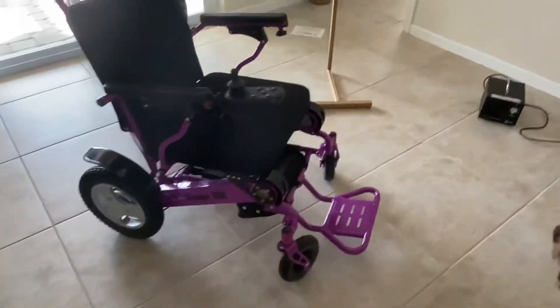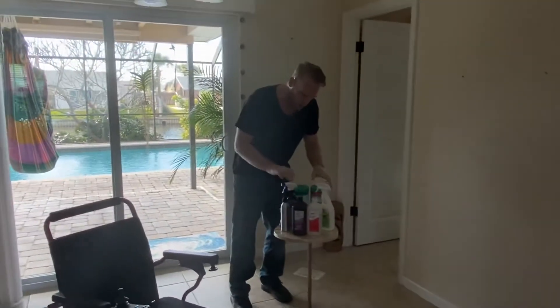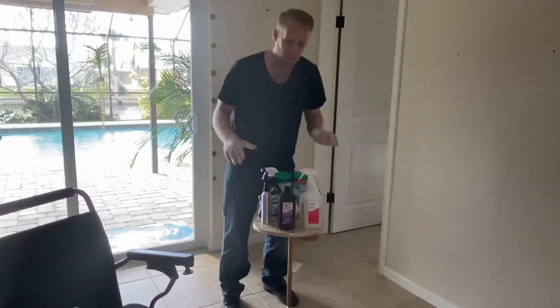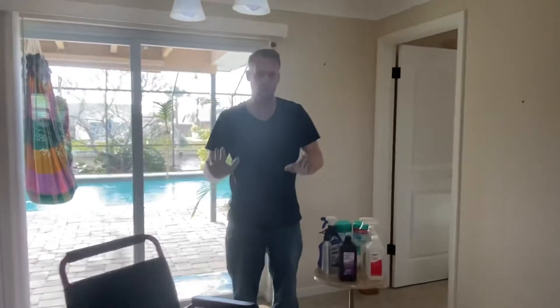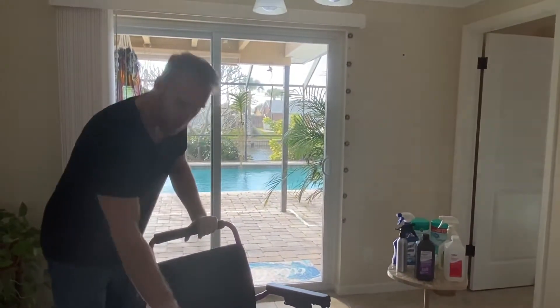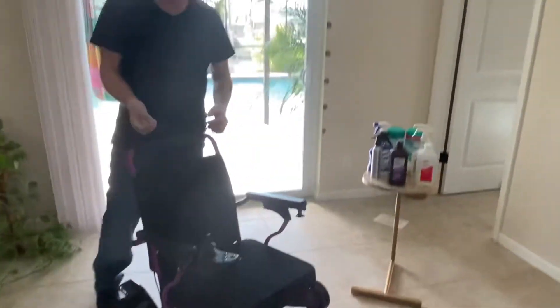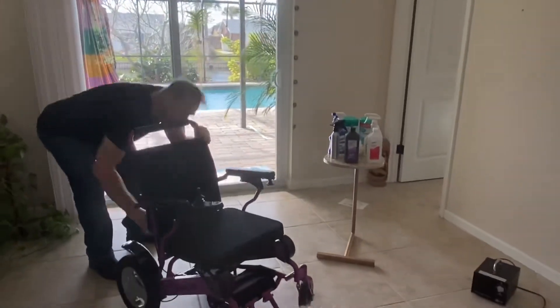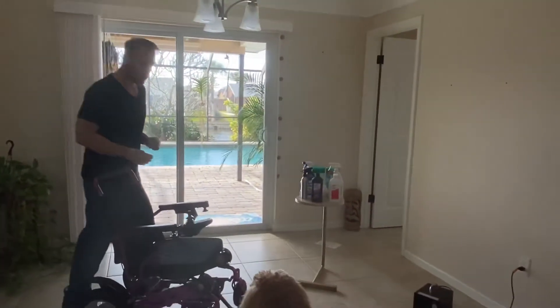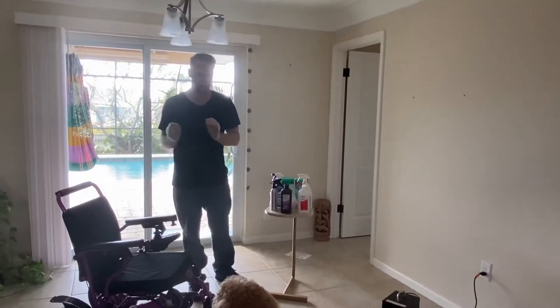When it comes to cleaning and sanitizing, with all the different products available, I'd like to go over what works and what doesn't work, what's efficient and what's inefficient. It doesn't matter if you have the Eagle Power Folding wheelchair, the Electra 7, or the Air Hawk — these methods are going to be effective for all chairs.